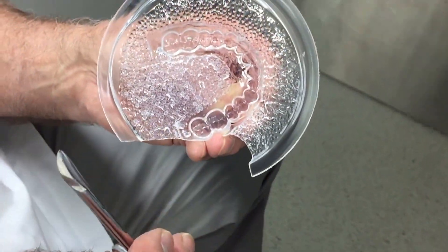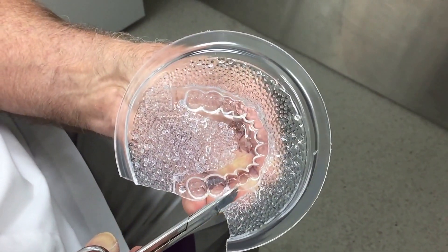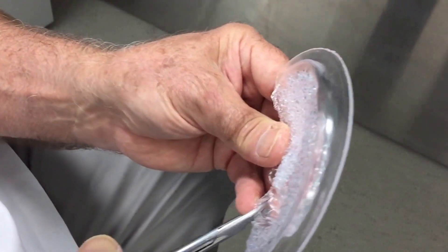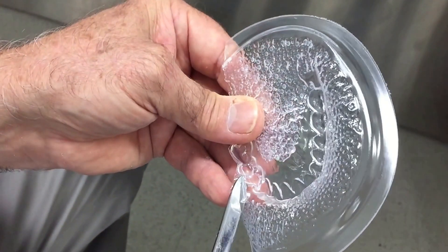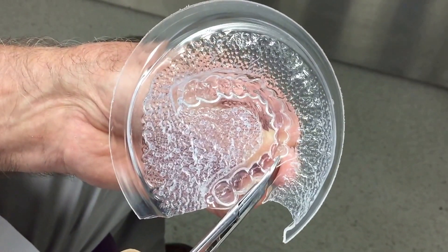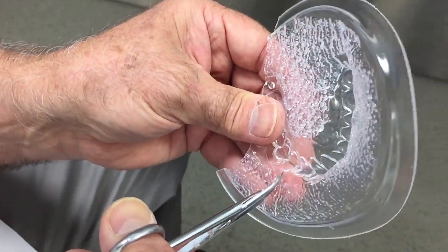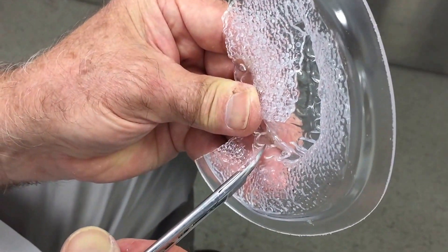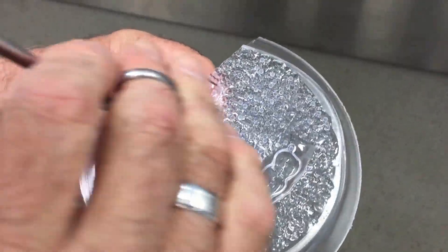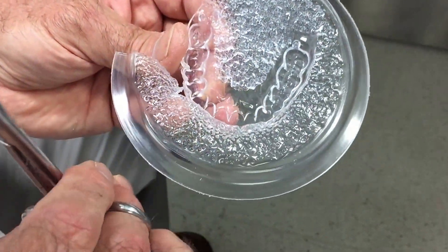Over the years we've tried using a heated scalpel, a burr, a mop — all different things to cut this — and the most successful consistent result is learning how to cut with a nice pair of sharp scissors. You end up with a very good finish to the periphery with no little jagged edges; your blanks look nice and clean, and are easy for the patient to keep clean. We're also going to trim very accurately on the palatal side in exactly the same way, because we want to limit any chemical that escapes through the interproximal from reaching and damaging the soft tissue.